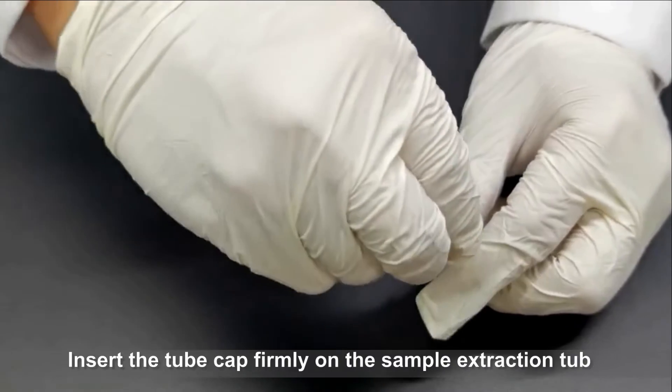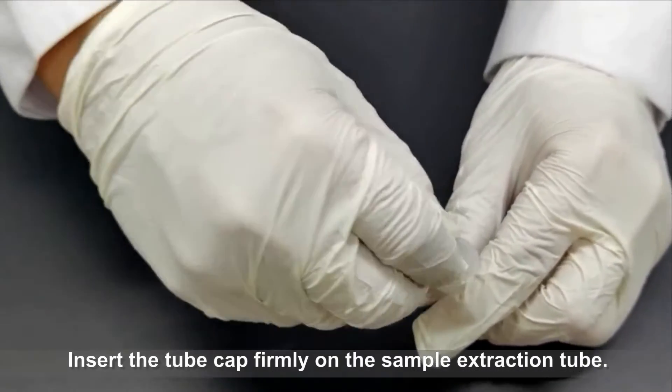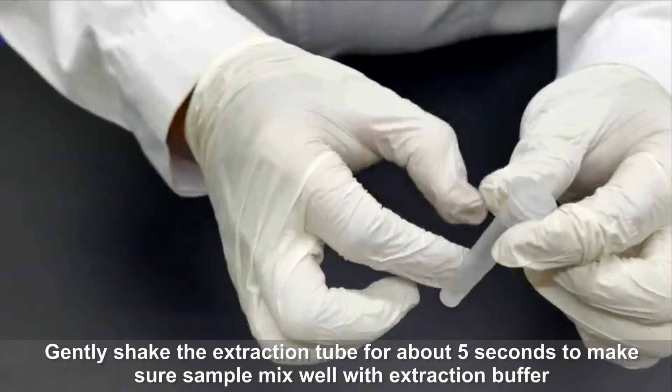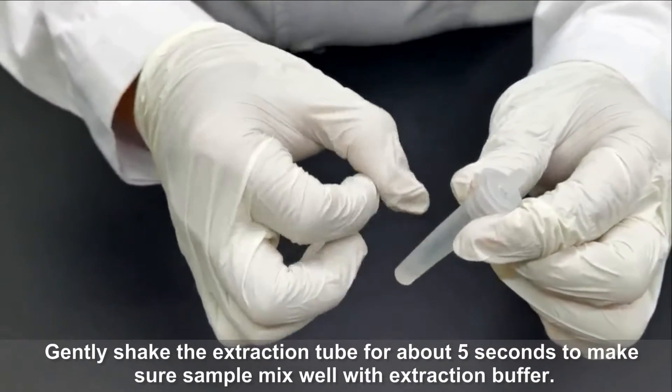Insert the tube cap firmly on the sample extraction tube. Gently shake the extraction tube for about 5 seconds to make sure the sample mixes well with extraction buffer.